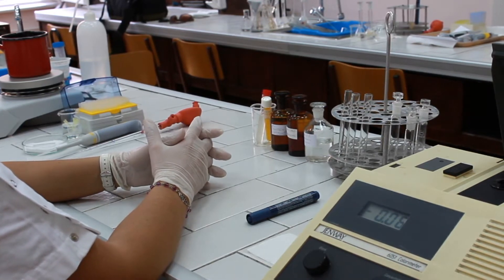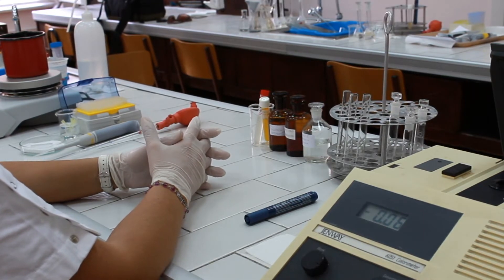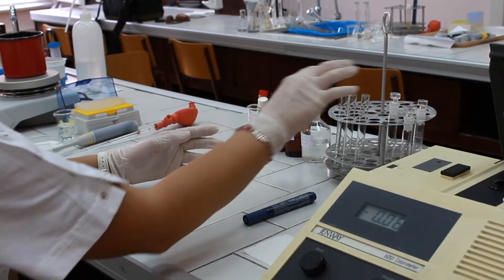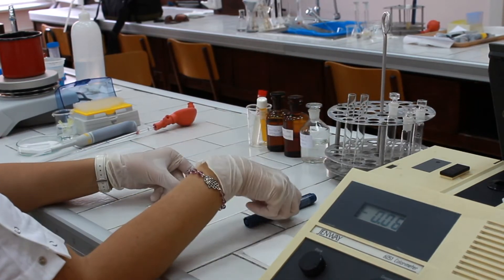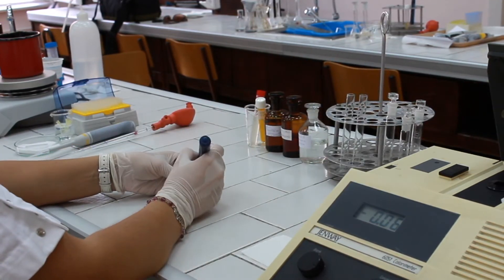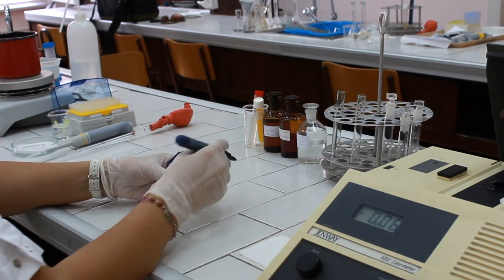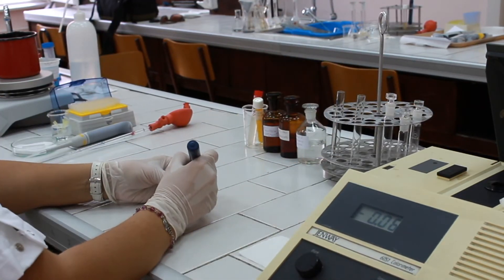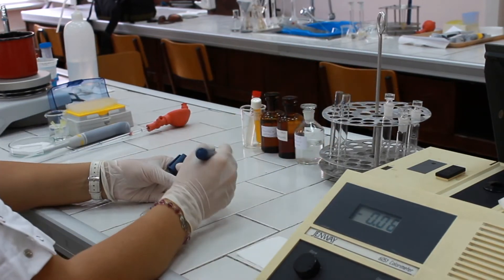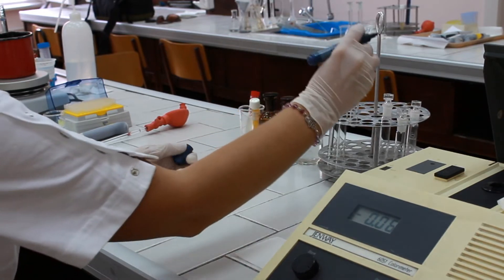The procedure of this method is very similar to other photometrical methods. We are going to take three test tubes and mark them as T for test, S for standard, and B for blank.